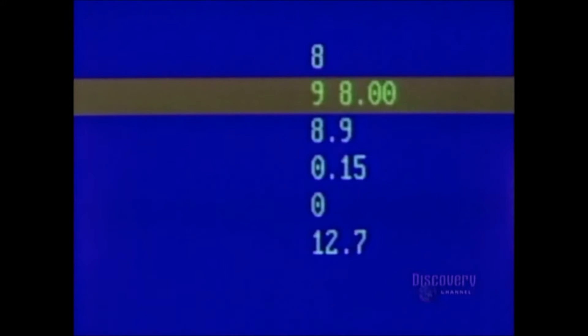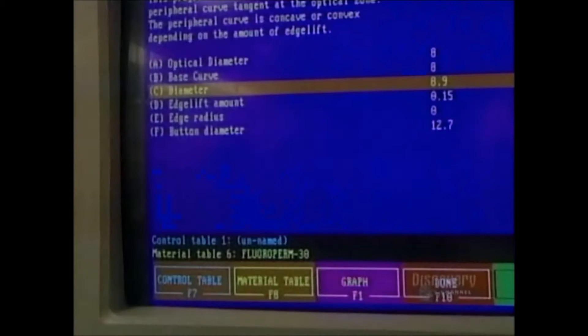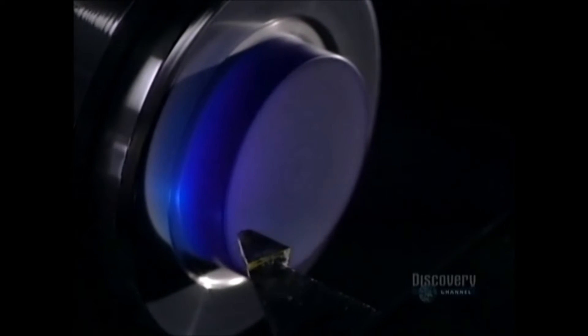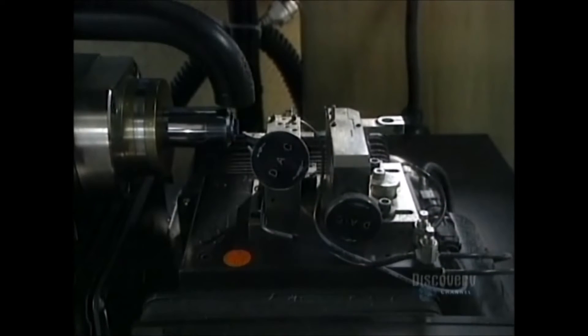The process begins with data processing control of the shaping. Data is supplied by computer which controls a digital lathe. They begin by shaping the inner curvature of the lens. This digital lathe, rotating at 6000 revolutions per minute, is equipped with an industrial diamond.